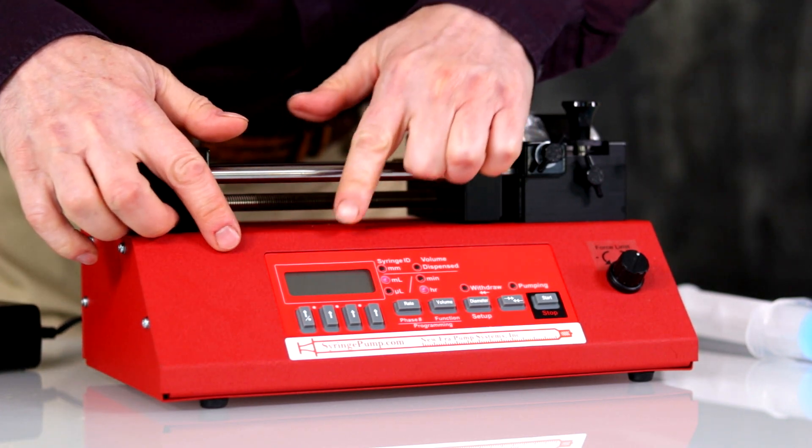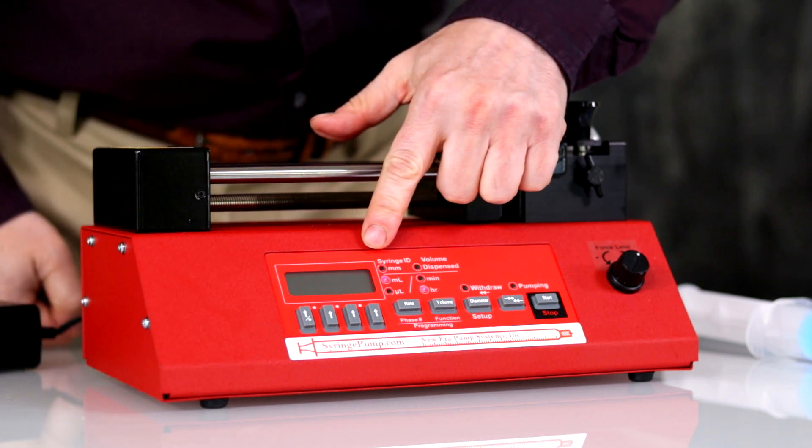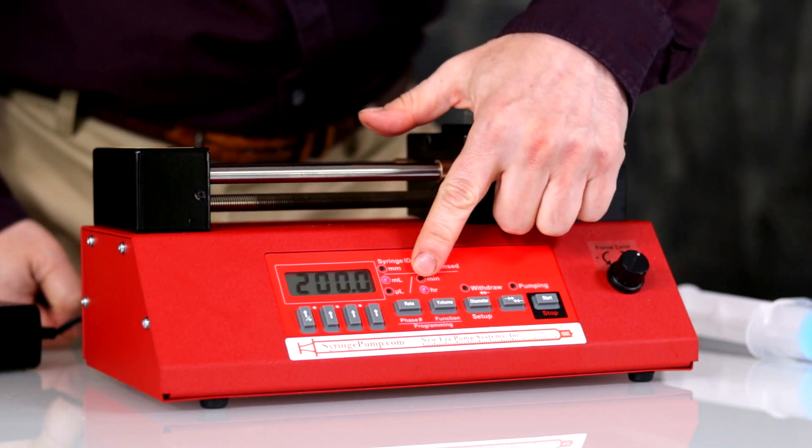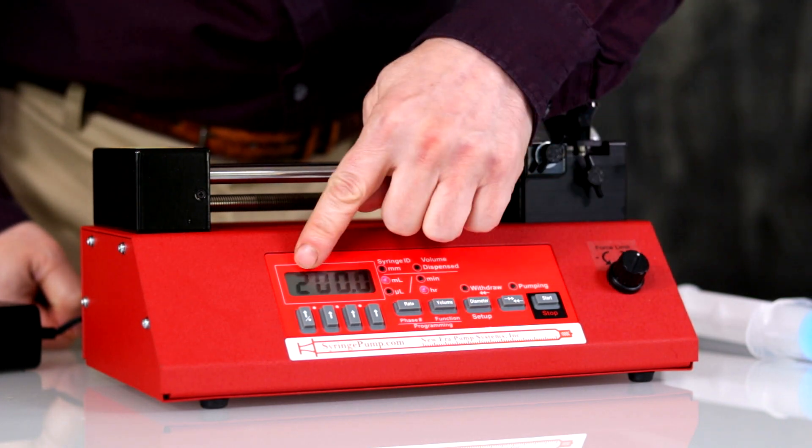The display will be blinking and the LEDs will be lit. Press any key to stop the display from blinking.